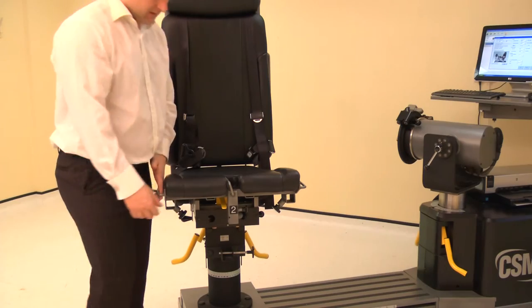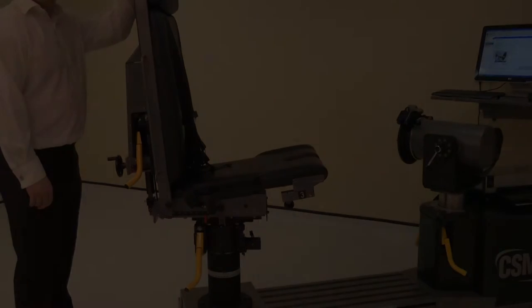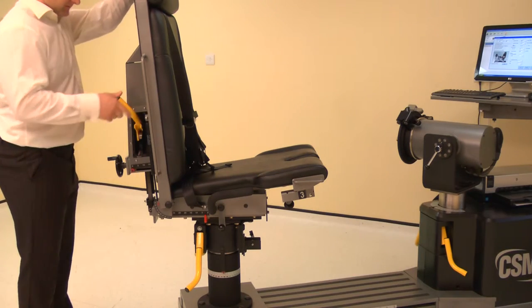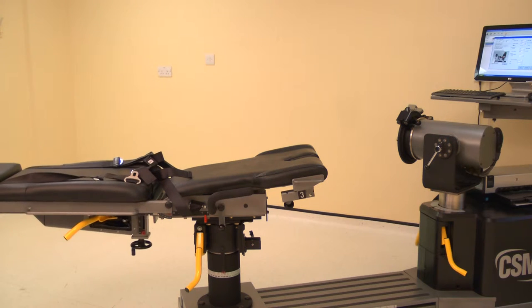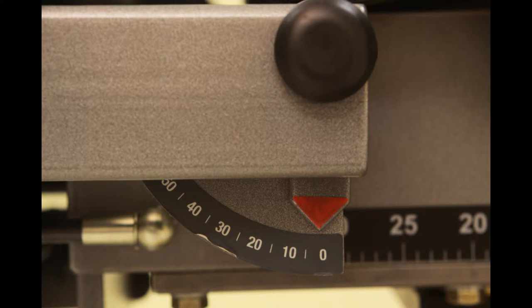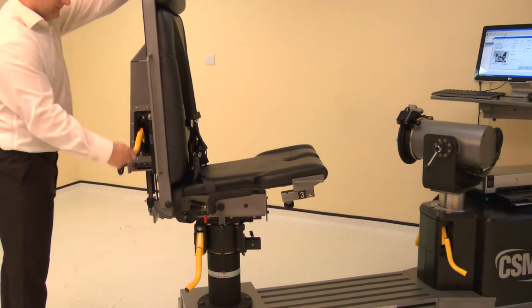Set the seat to the down position by lifting the seat and releasing the lock. To set the chair back angle lift the locking handle and adjust the chair back. Adjust the chair back angle to 0 degrees. If using the chair for stabilization position to 90 degrees. Ensure both locking handles are pushed down to secure.